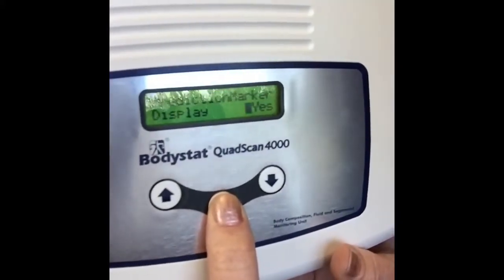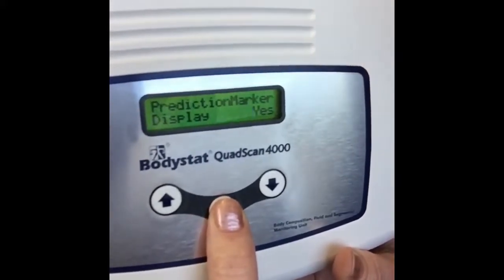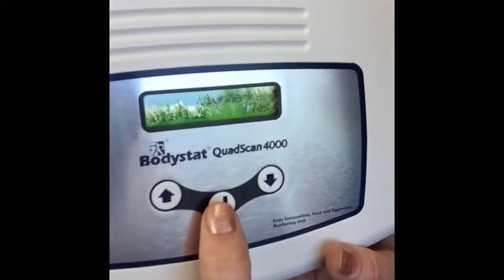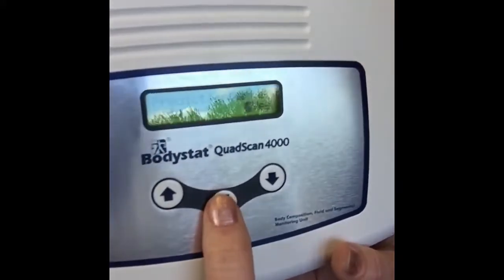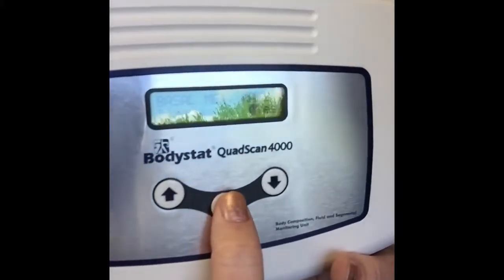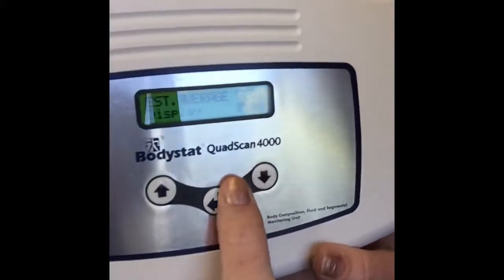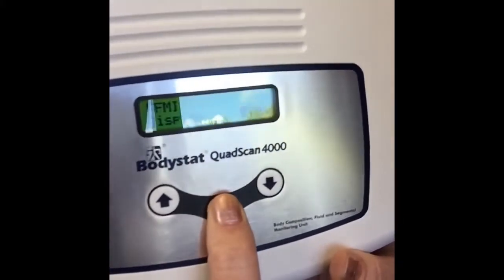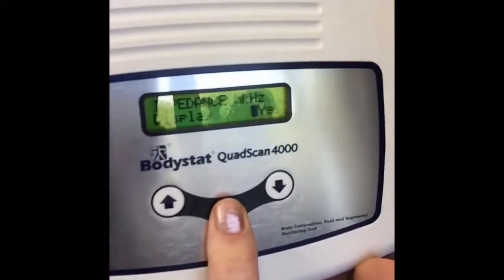Now this is useful. Sometimes people are only interested in looking at the prediction marker, so you can have every other screen turned off and it only showing the prediction marker will just help you avoid having to scroll through right till the end to get the prediction marker. So you can have that option of turning that one on or off. Your basal metabolic rates, likewise estimated average requirements, and your BMI, and all your indexes as well, and your waist to hip ratio. Now we've got the raw data.